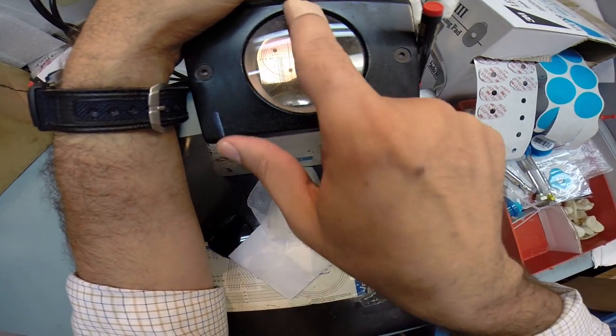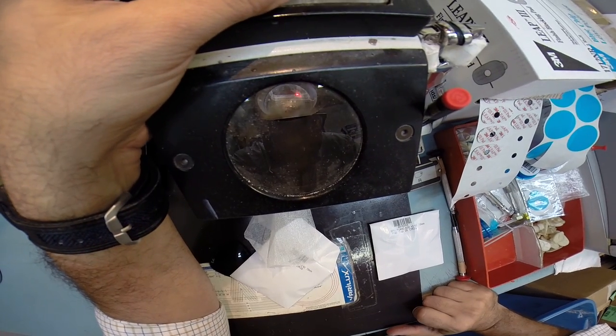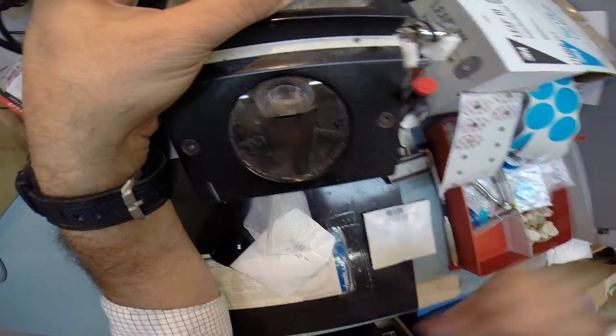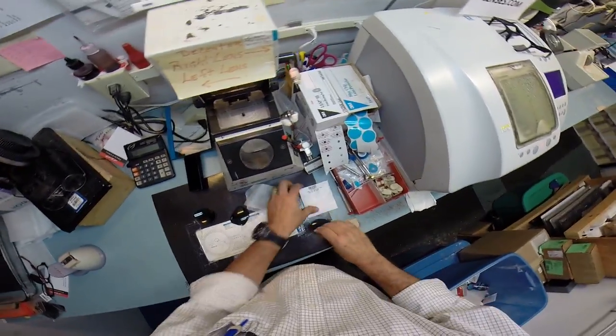Now, I'm going to get everything lined up. Essentially, what I'm looking in is an optical crosshair, a vertical meridian and a horizontal one. And I'm going to make sure your lenses, for starters, are horizontal. So, that is good. Let me do the same thing now for your left lens.